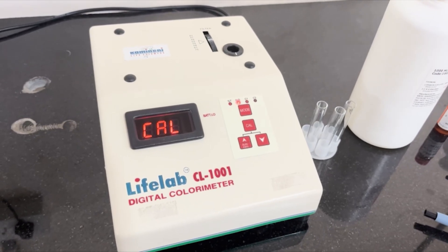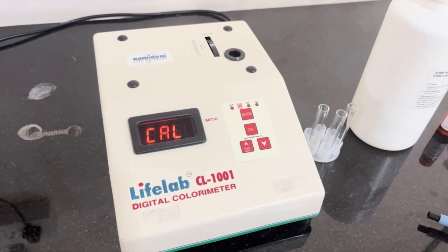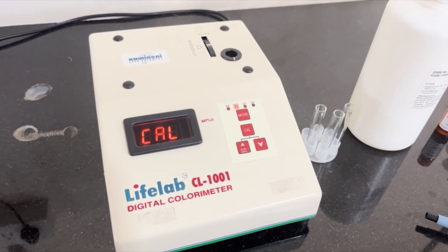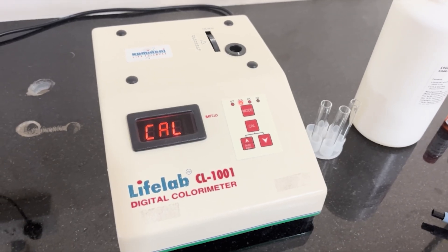Hello everyone. Today we are going to do hemoglobin estimation by the cyanmethemoglobin method.